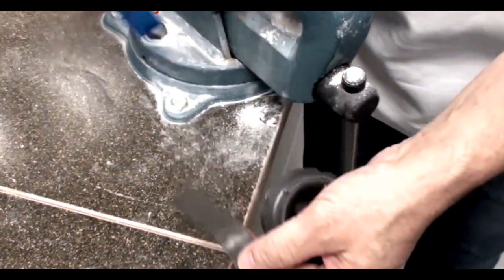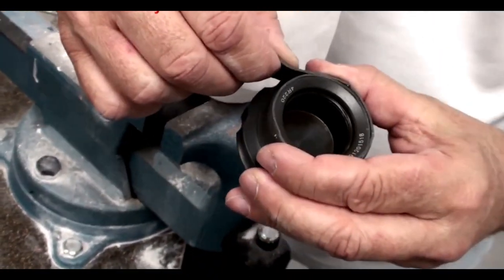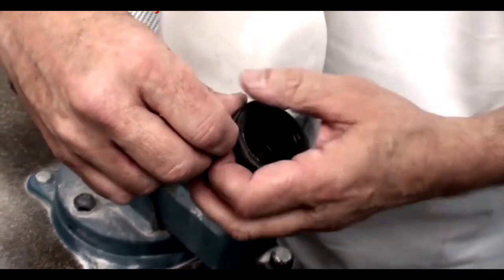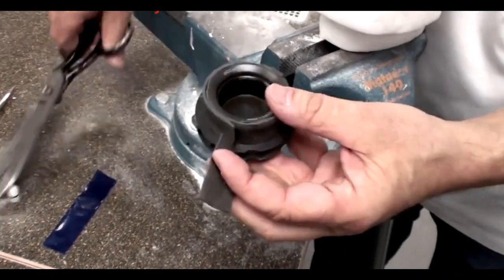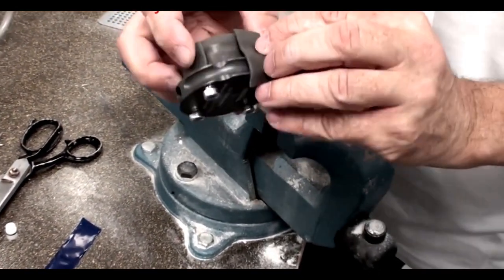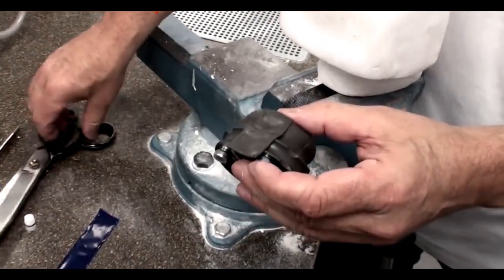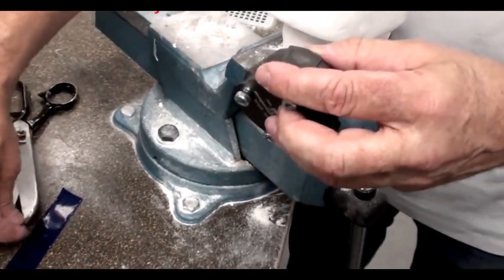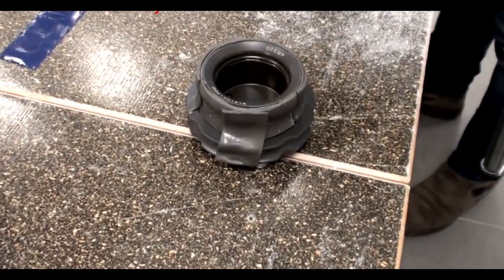Then you will place a strip along the anterior and posterior axis. Put it around the other side.